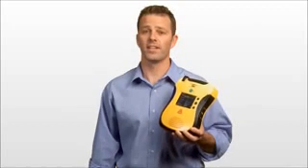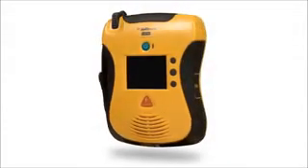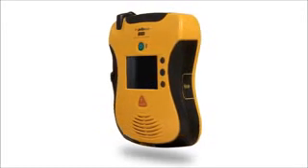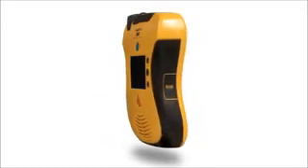DefibTech has always been an industry leader for innovation and design. That is why their AED has been selected to protect many high-profile locations, won numerous awards, and even been exhibited in the Museum of Modern Art in New York. And now DefibTech's newest AED proves why it's still at the head of the class in both function and form. Its smooth sleek design is even smoother and sleeker. Its rubberized grips make it easier to hold, and its ergonomic design makes it feel secure in your hands.